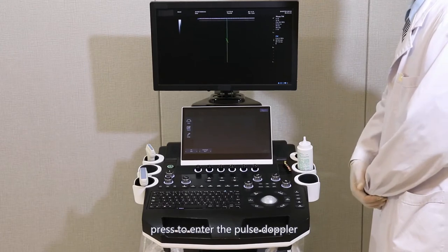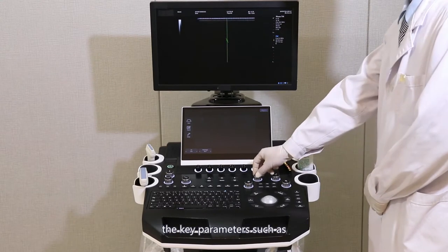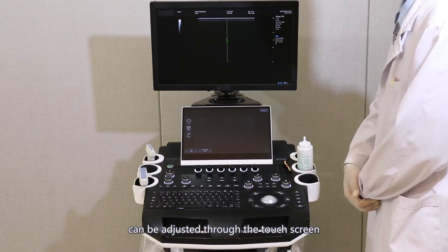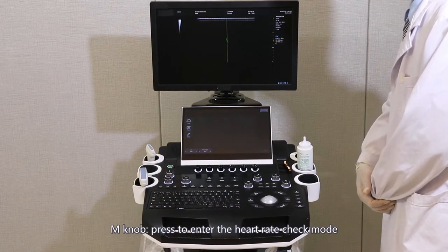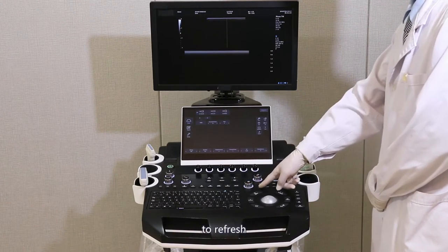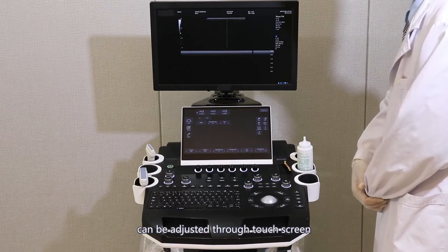PW-knob: press to enter the pulsed Doppler mode; rotate to adjust the spectral gain value. Key parameters such as sample gate, angle, and display layout can be adjusted through the touch screen. M-knob: press to enter the heart rate check mode. Update button to refresh. Display layout and speed can be adjusted through the touch screen.